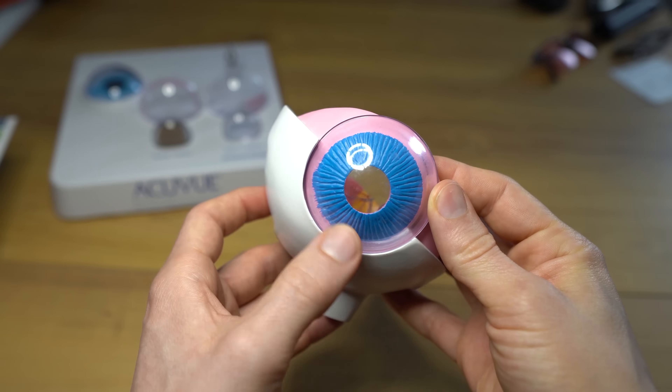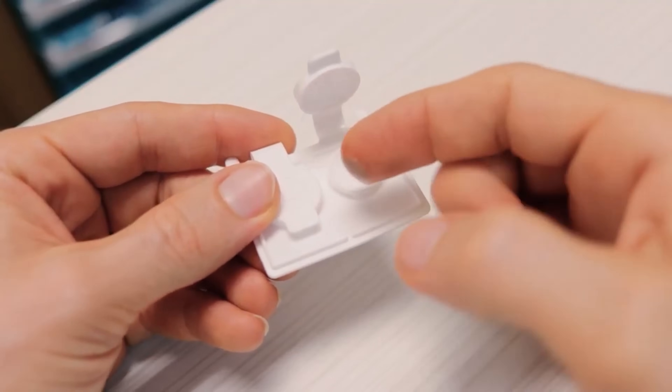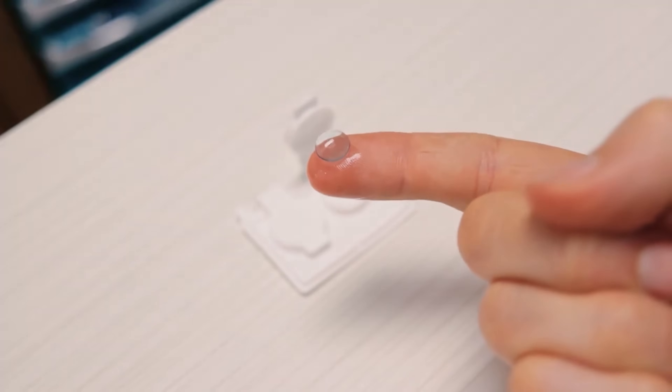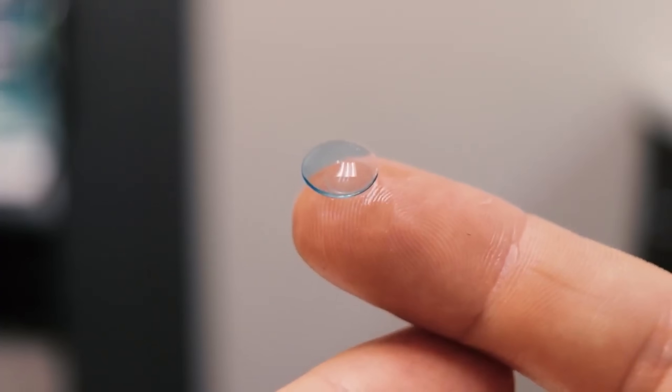Children make an excellent candidate for these lenses, because studies have shown that ortho-K can slow down the rate of progression of nearsightedness by almost up to 50%. That whole study of trying to slow down or prevent myopia from getting worse is called myopia control or myopia management. Because ortho-K lenses can slow down how thick kids' glasses get, many eye doctors are jumping into this as a way to help prevent future disease and even blindness.